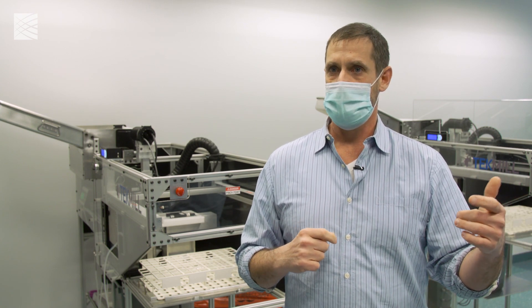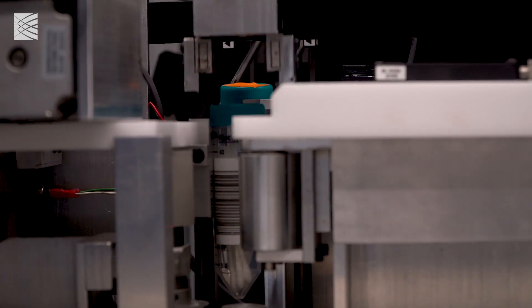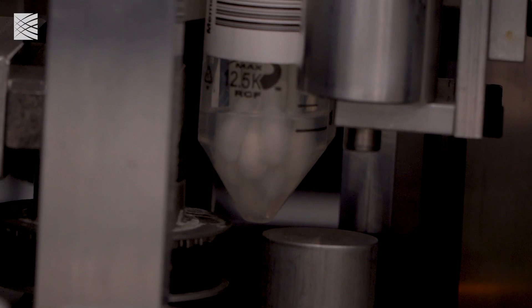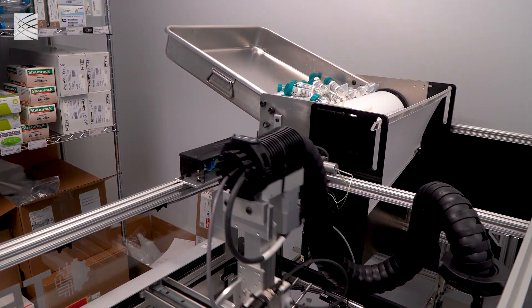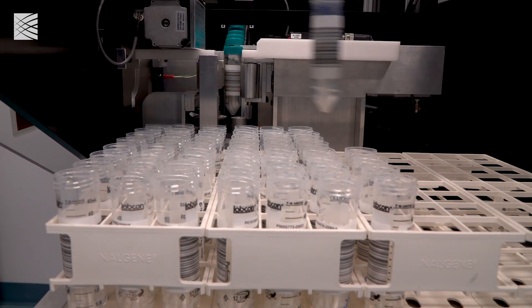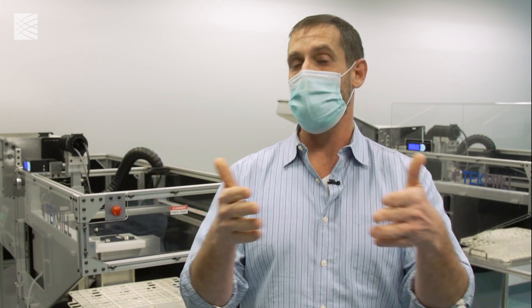By pooling 10 swabs in one tube, getting a result, returning whether that pool is positive or not — if it's negative, all the individuals in that pool are presumptively negative and can go about their normal schedules. If that pool is positive, it's presumed that at least somebody in that pool is positive, and that forces a reflex test, which is individually testing everybody in that pool and narrowing down further who is positive.